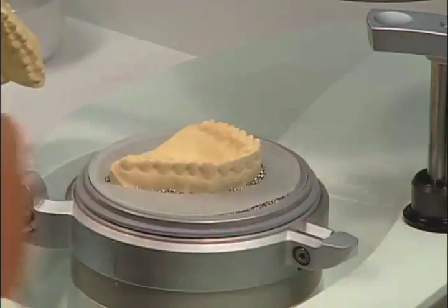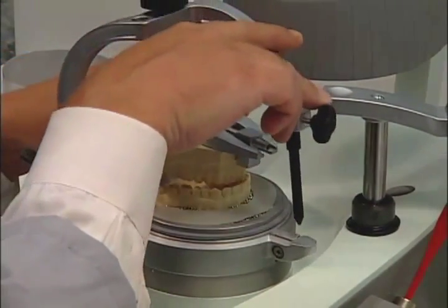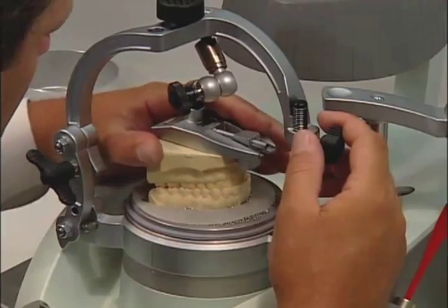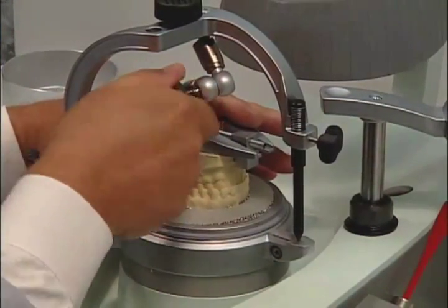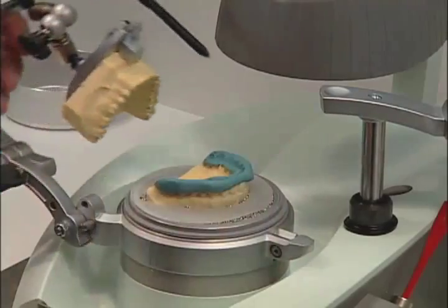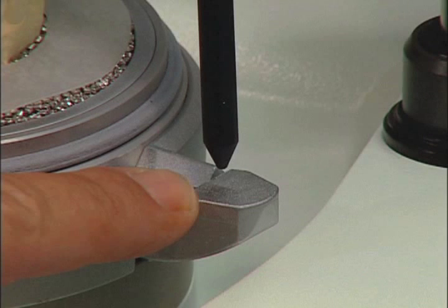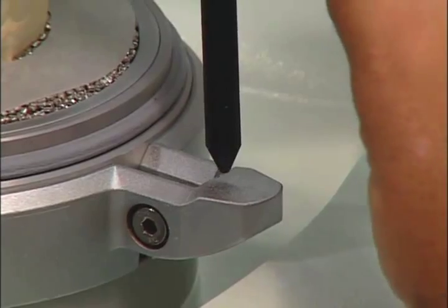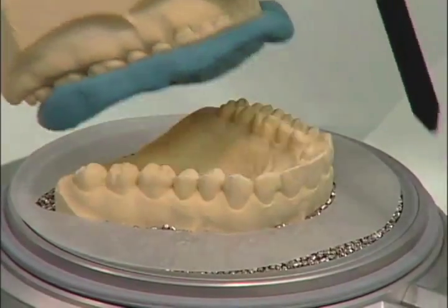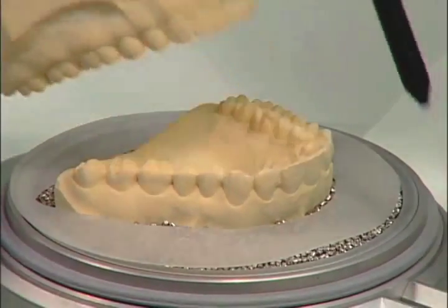Place the forming pot back into the forming chamber and cover with the granulate cover. Be sure that the arresting joint is flexible, and hold the model plate with the model while closing the occludating bow until the supporting pin has contact. Grip the upper model plate and fix the arresting joint. You will know the model is secured once the supporting pin is on the zero scale line. If you have a construction bite, place it on the model and close the occludating bow. Notice that now the support pin is no longer touching the support table.